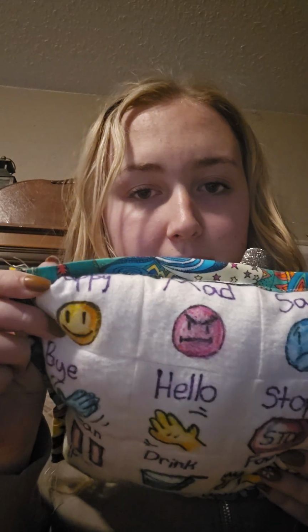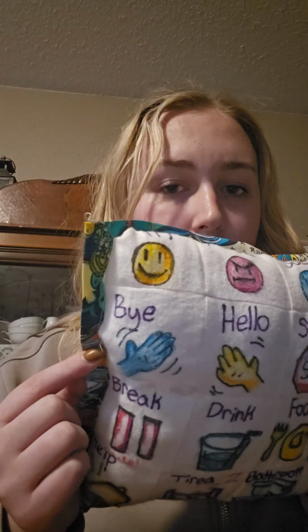This pillow is designed with several features needed to meet a variety of student needs, serving three primary functions. First, it is a communication aid with commonly needed words for pointing. This is modeled after a classic AAC device that you would see primarily on a tablet. So I've got commonly used words like happy, mad, sad, three basic emotions. I've got more: yes, no, stop, help, goodbye.